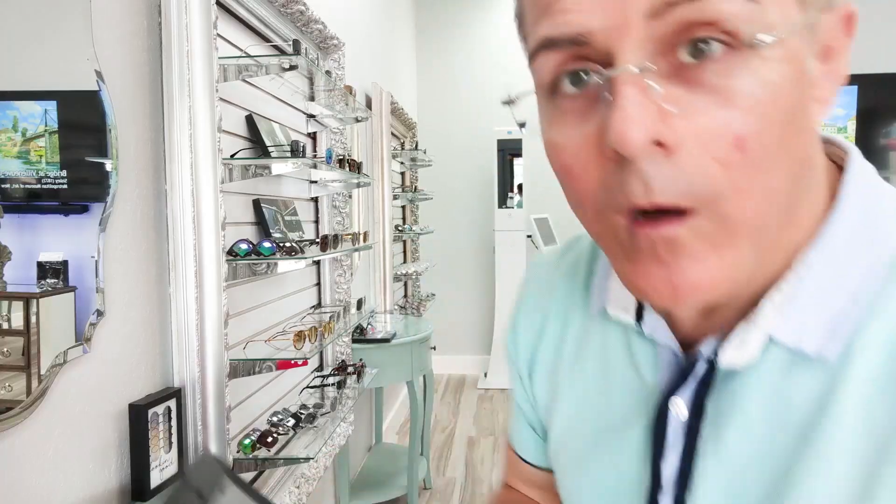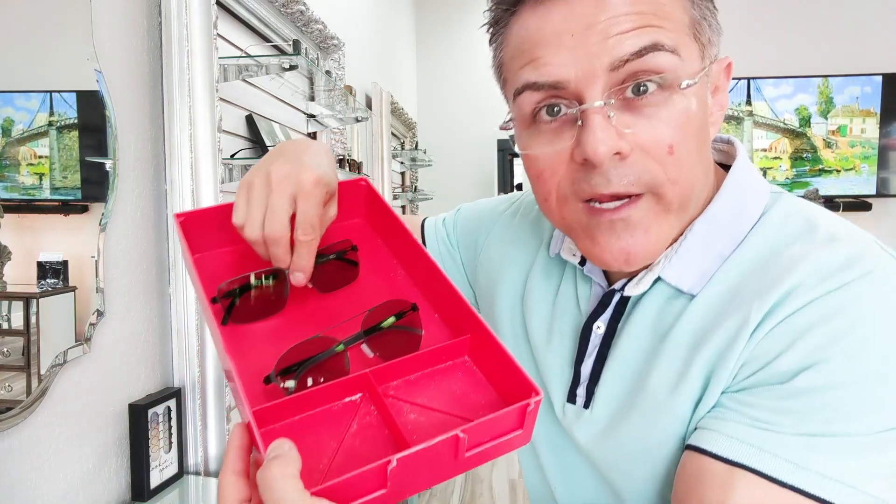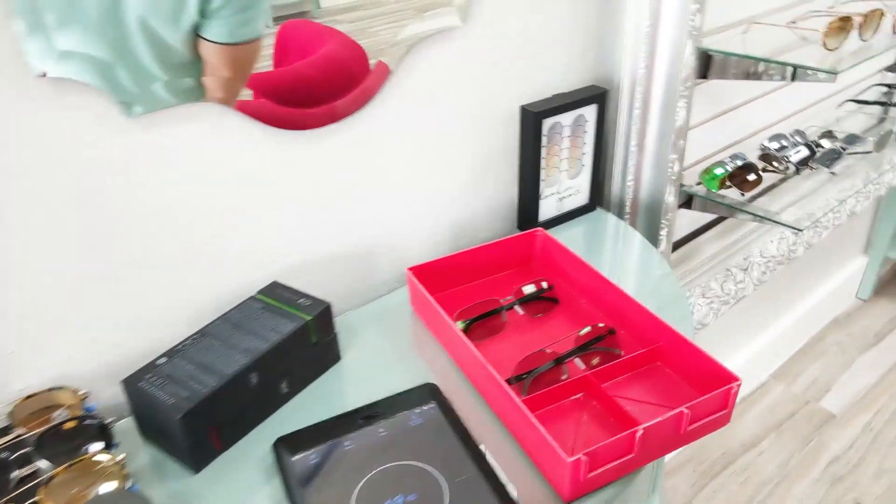So this is how dark they got. We've already been inside for a couple of minutes, so they started getting light. We just got back inside and I'm starting the timer right now, so we can learn how many seconds or minutes it takes for the lenses to go from fully activated to completely, completely clear. We are at 17 seconds. Historically they've taken about 10 minutes to get completely clear, and I know that's really annoying, but it's the truth — 10 to 15 minutes. We're going to put that issue to rest by finding out exactly how long it takes across two different lens batches.